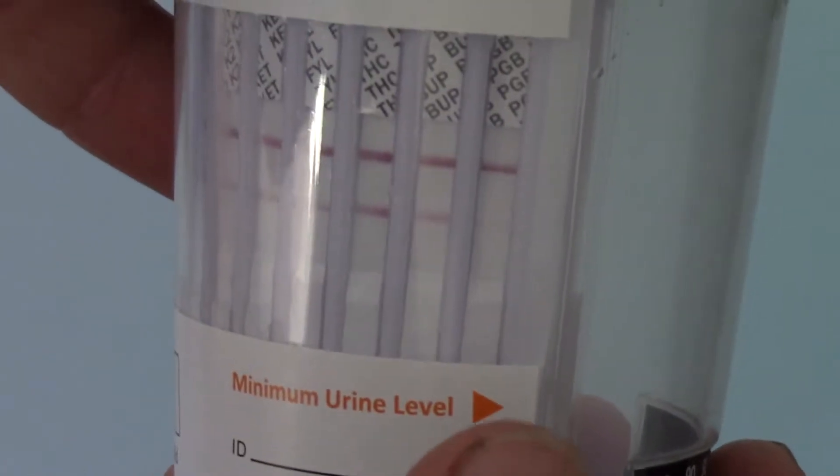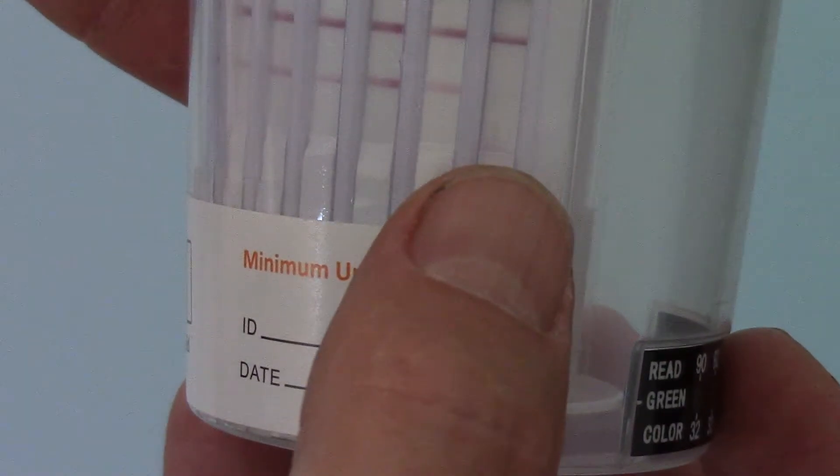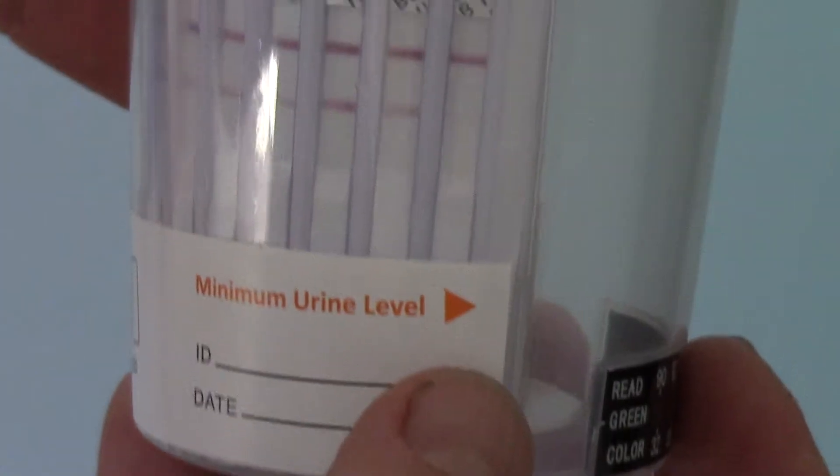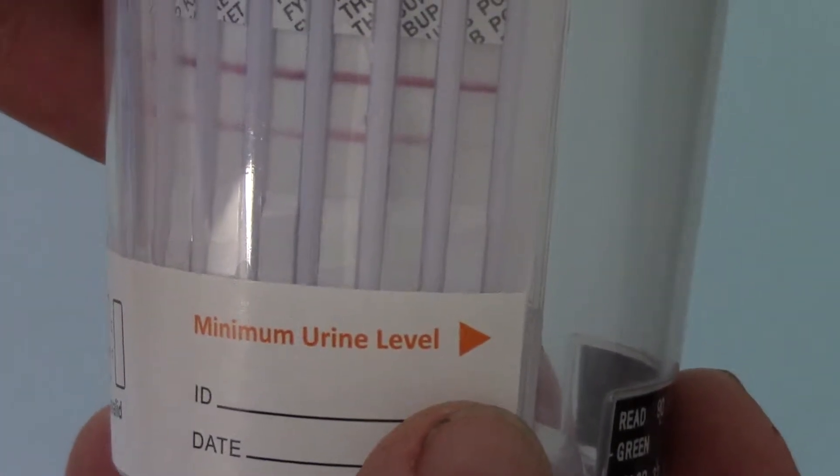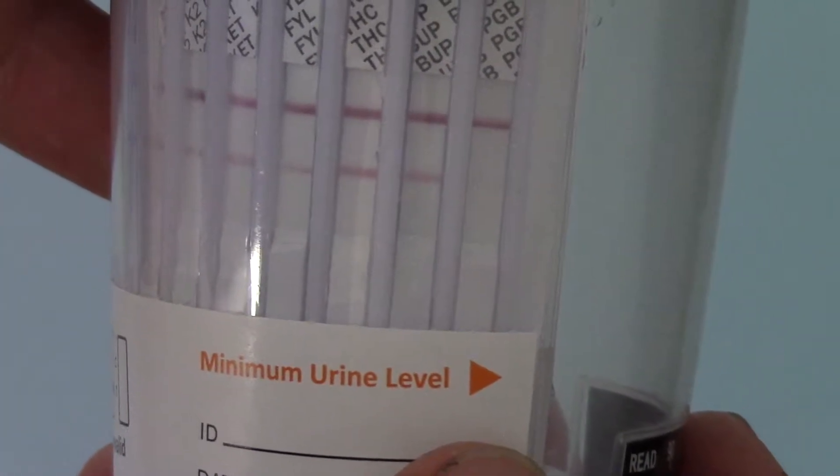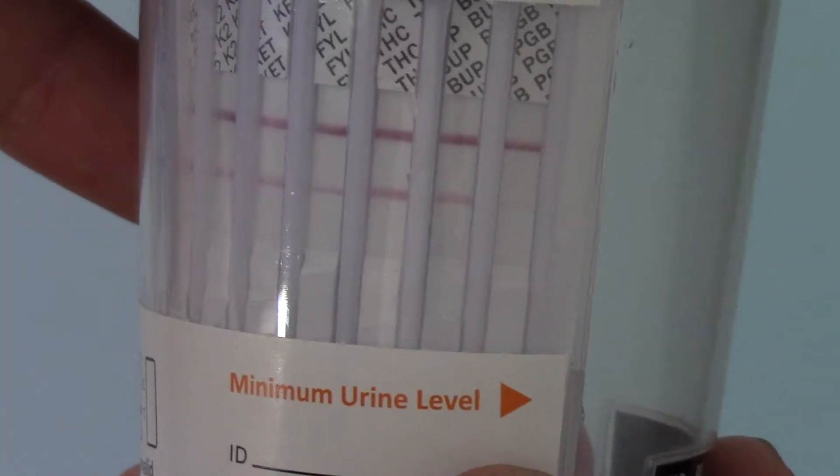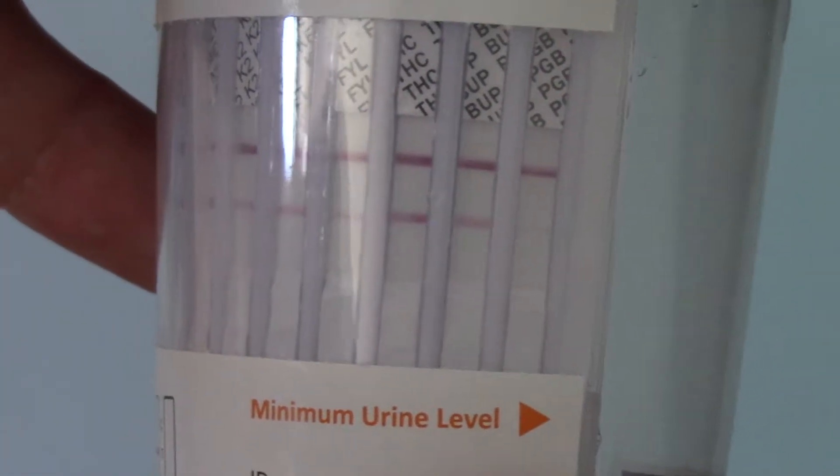And the one we're going to draw your attention to is the test on the end here for pre-gabalin. Now I don't know whether the camera is going to pick this up, but that is a very thin, very faint test line showing at 10 minutes.